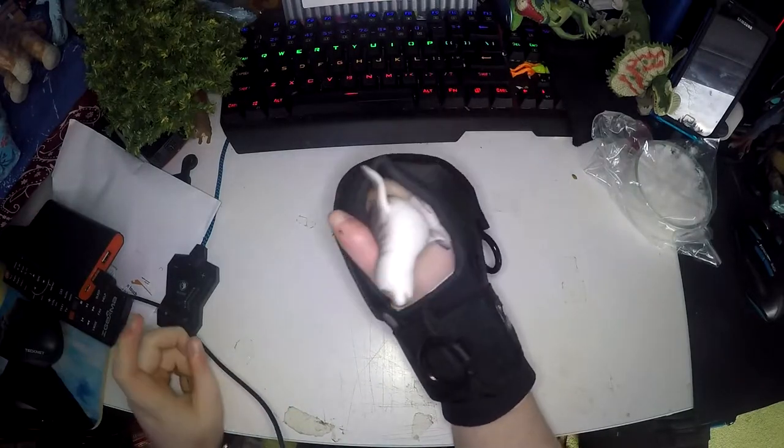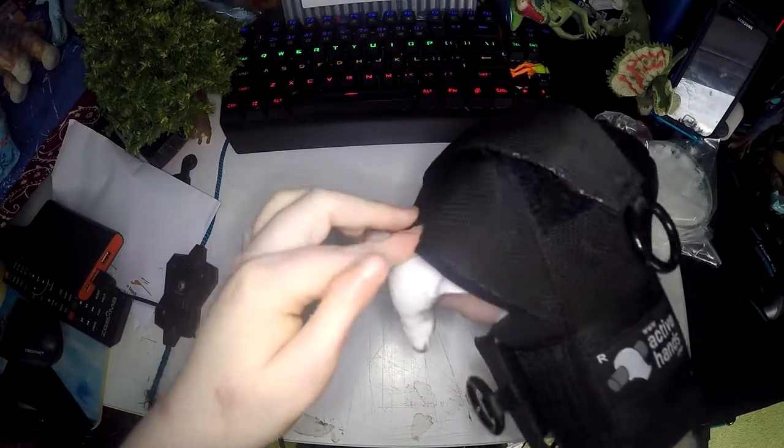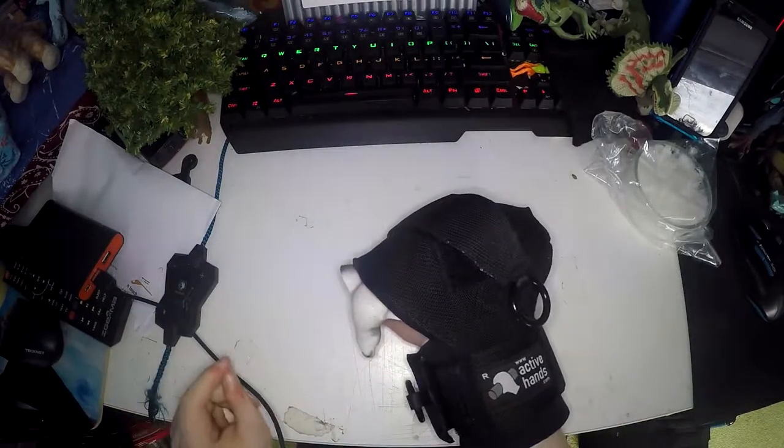This is the small but it is still a bit too big on me, as you can see the bits for the side of your hands come out quite a bit because I have absolutely tiny hands.